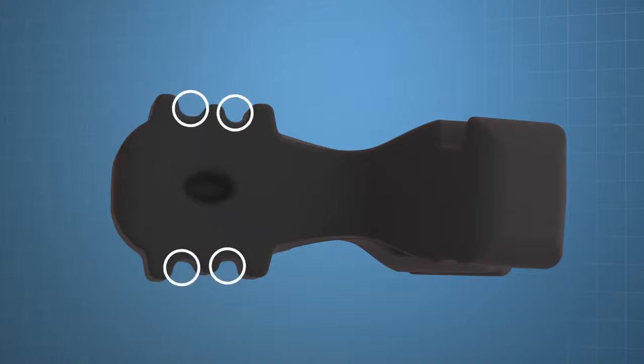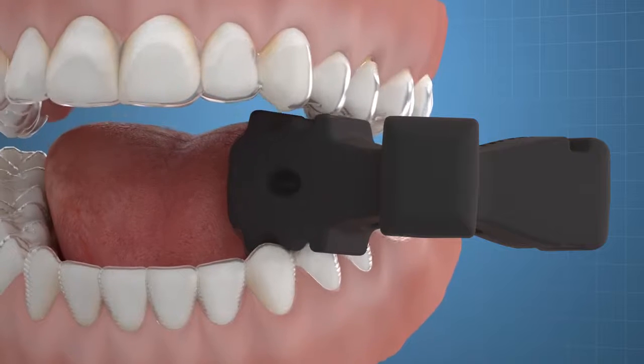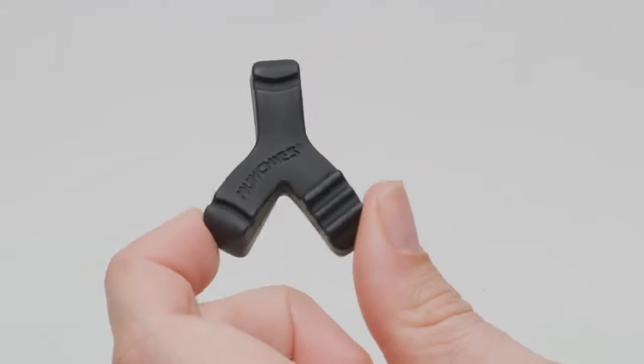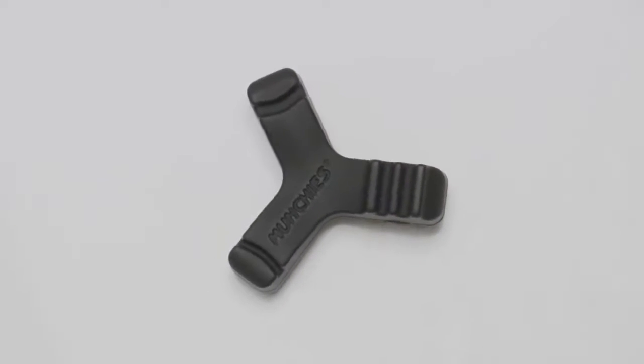Munchies Maintain are designed with a state-of-the-art EPS, enhanced posterior seating arm, and feature four-touch point technology to provide maximum interdigitation and engagement with the retainer. They are fabricated from an even more robust viscoelastic silicone than regular Munchies, which provides ideal force systems to seat clear retainers.